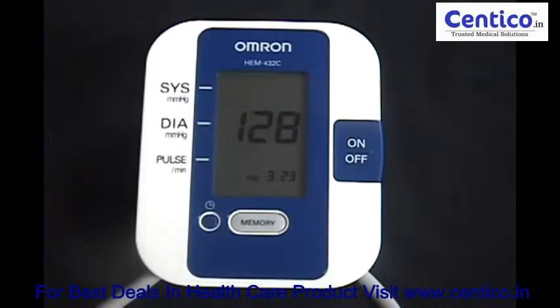You just wait until the blood pressure measurement is done. Most models will also give you the opportunity to store the blood pressure measurements. That way you can monitor your progress over a number of weeks.